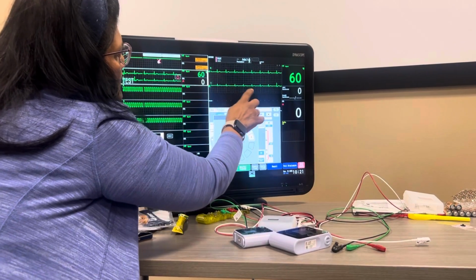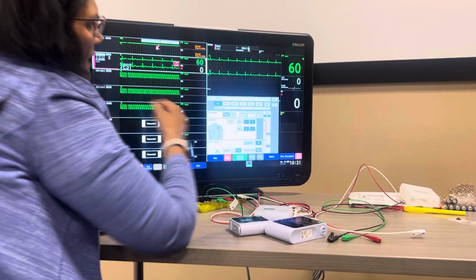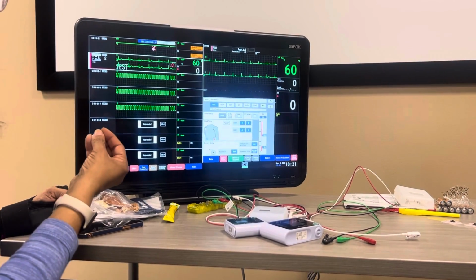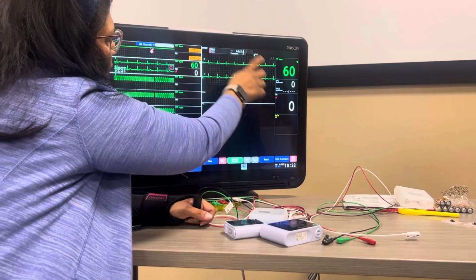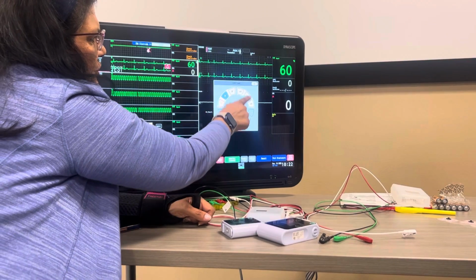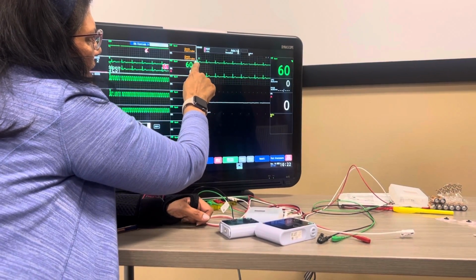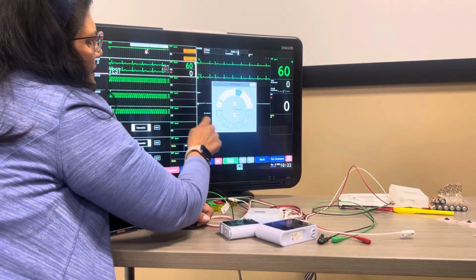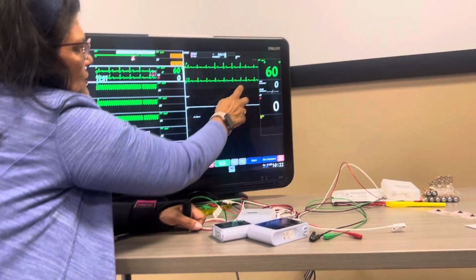So see how I increased it? Mm-hmm. So you can do that. And that's really helpful if it's alarming and it's not picking up that QRS, you can increase it like that. Another way to do that is if you've chosen the patient, you see that Roman numeral 2? I can click on that and change the lead, or see that ×2? There's ×1 there, it's just embedded. And I can change the size. So that's 2 ways of doing that.